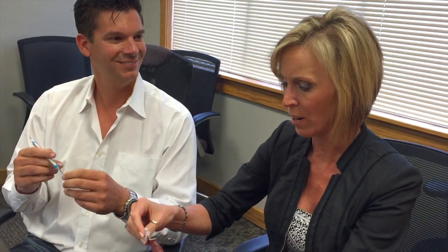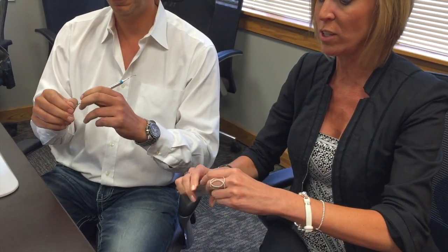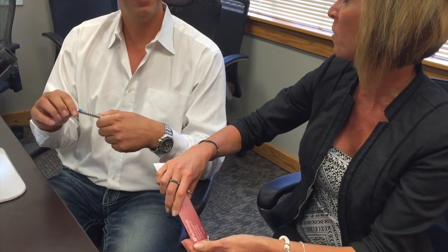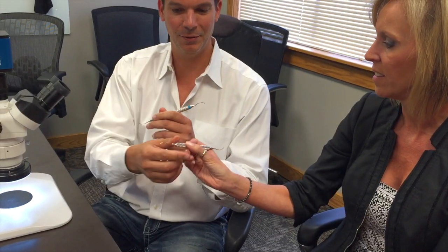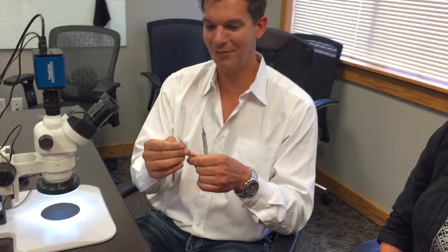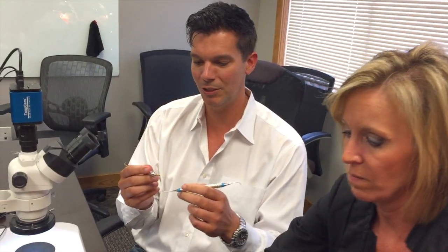You might have better luck than I did. You can tell it's been a while since I... here we are. Sometimes when you hear stuff and you see stuff, you're like, it's too good to be true, right? How can this edge be an edge? I'm gonna give you this. Thank you. Looks like drumsticks. Chopsticks? I prefer Thai, maybe a little sushi. That'd be alright. Speaking of healthy, let's talk about the health of a blade.